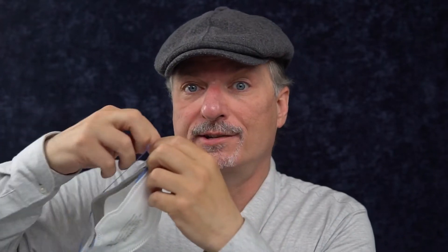To simulate what happened to me earlier, I want to know what happens when the band breaks while you're wearing it. So I'm going to remove this staple here and reattach this band. It'll be a little shorter and maybe a little tighter than it would have been otherwise, but since we're going to break it, that's not going to be an issue for the second test. We will test it with the headbands intact first, and then cut it and see how it tests after that.